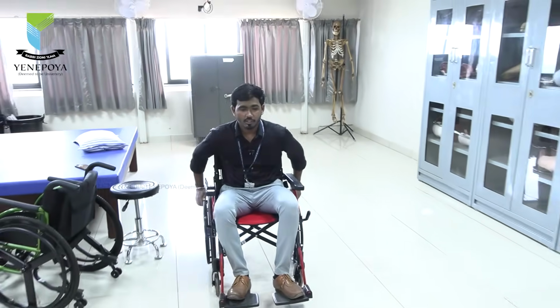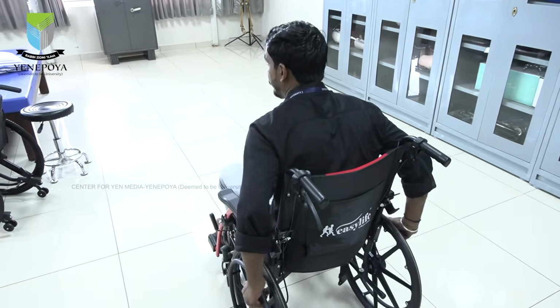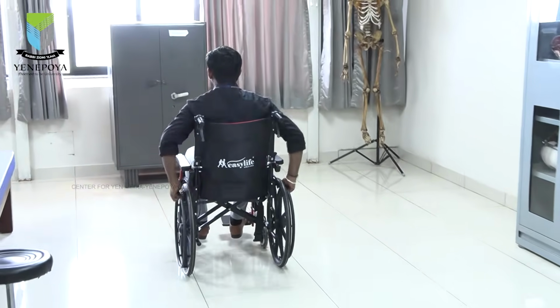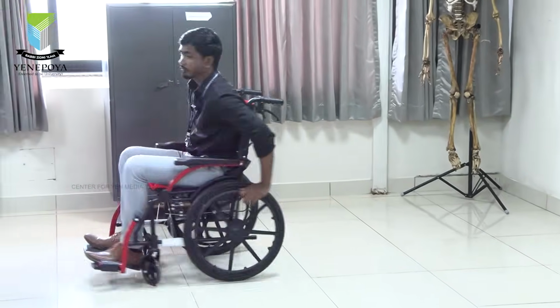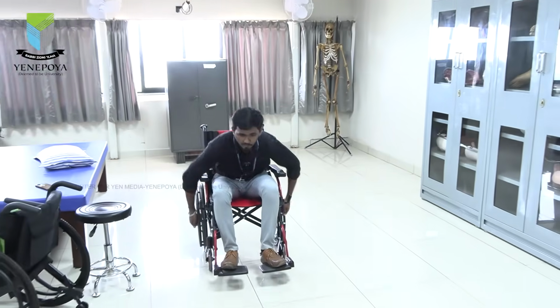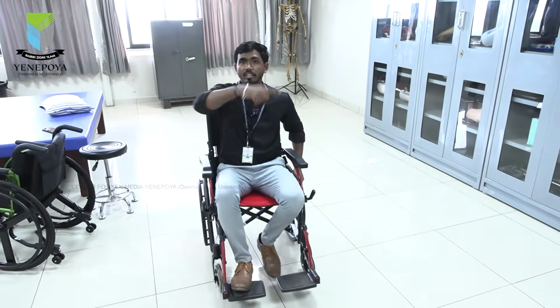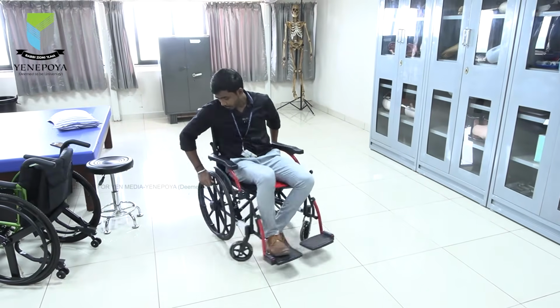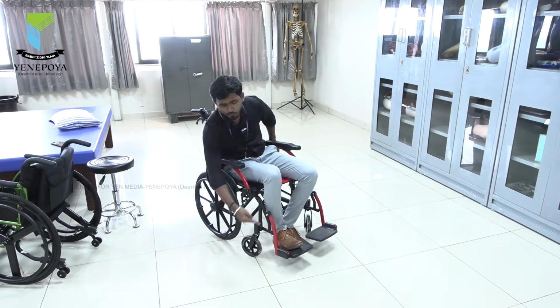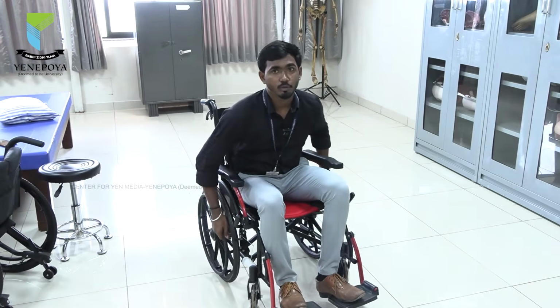Another one is called double loop, where it goes in an 8 pattern. The only simple difference is the double loop. So you have to go like this, my hand will come like an 8, again go like this, it will come like an 8. We'll see it in the front view also. So I will push like this, then my hand will come, again push like this, my hand will come. If you see, it goes like an infinity symbol. It starts from here, I will go like this, then I will come again here. So it goes like this, again one loop, again I will hold here. So this is the difference between single loop and double loop propulsion.